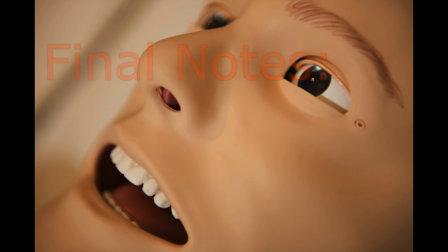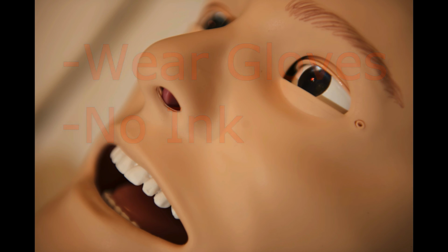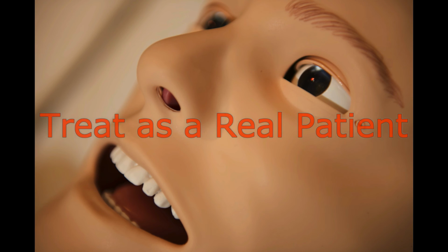Final notes when using the SimMan 3G. Remember to wear gloves and to keep ink away from the mannequin's delicate skin. And finally, always treat the mannequin as you would a real patient.